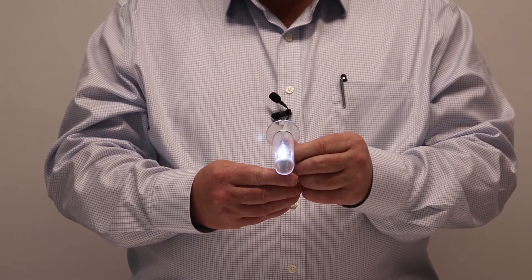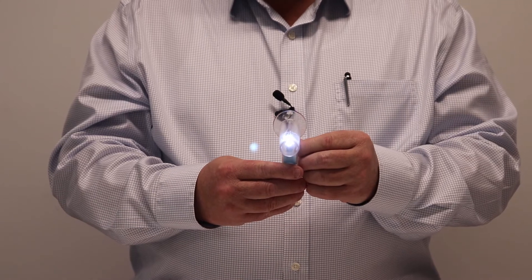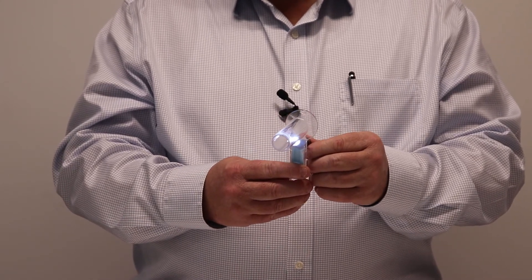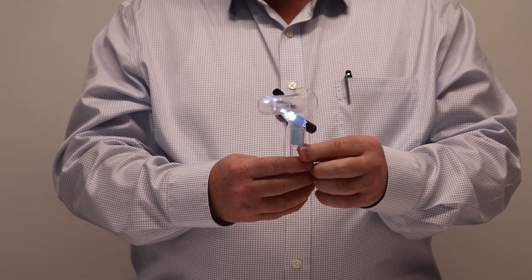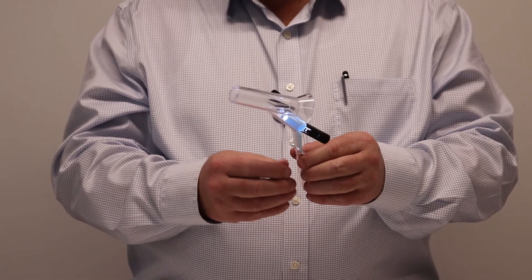You remove the light tab on the side, which switches it on. As you can see, the LED is now shining and, once again, focused on the distal end and thrown forward into the rectal cavity for the best illumination results.